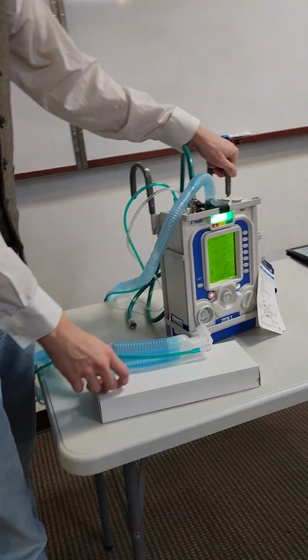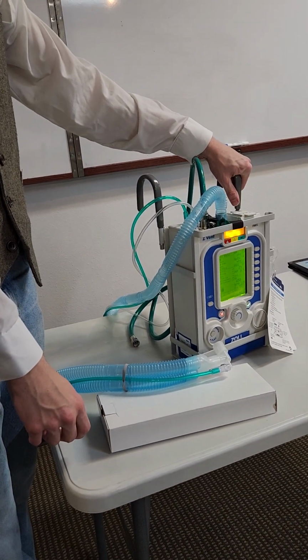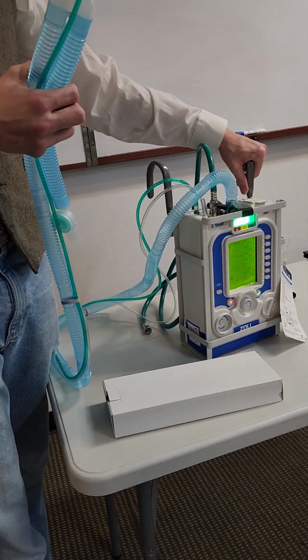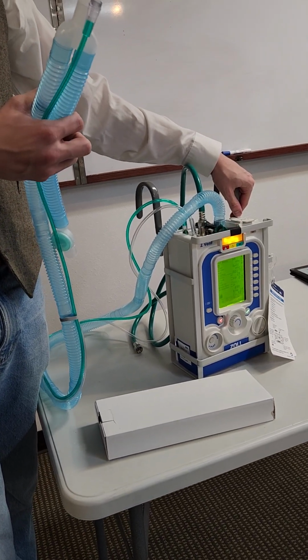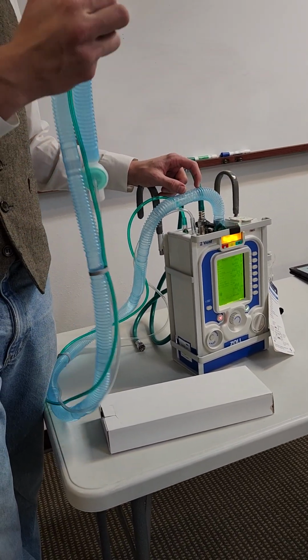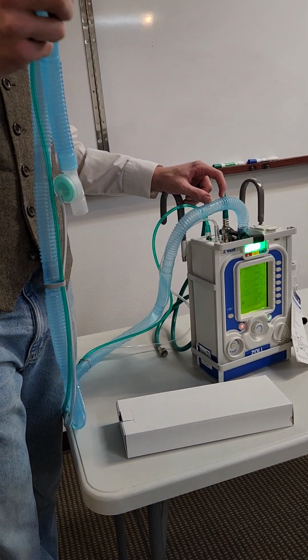Are we gonna have separate filters? We may be getting new filters, but otherwise you could just use the same filter. Oh, those filters will still work. Yep. With the filters, it's all about just the dead space amount. So usually it's about 25 to 35 milliliters of dead space. So it just has to be accounted for. When it comes to changing circuits on this, the Z-vent's already calibrated for the Z circuit. So it's already got the dead space of this calculated out, ready to go.